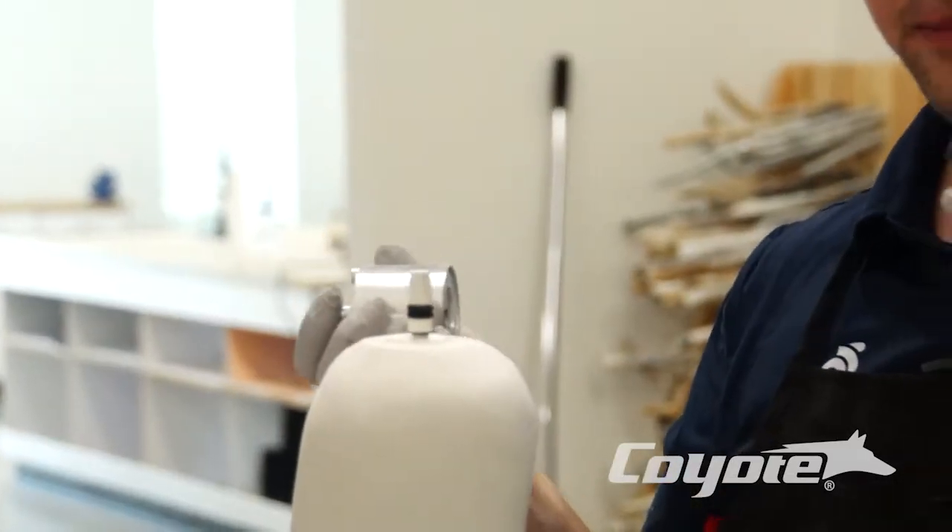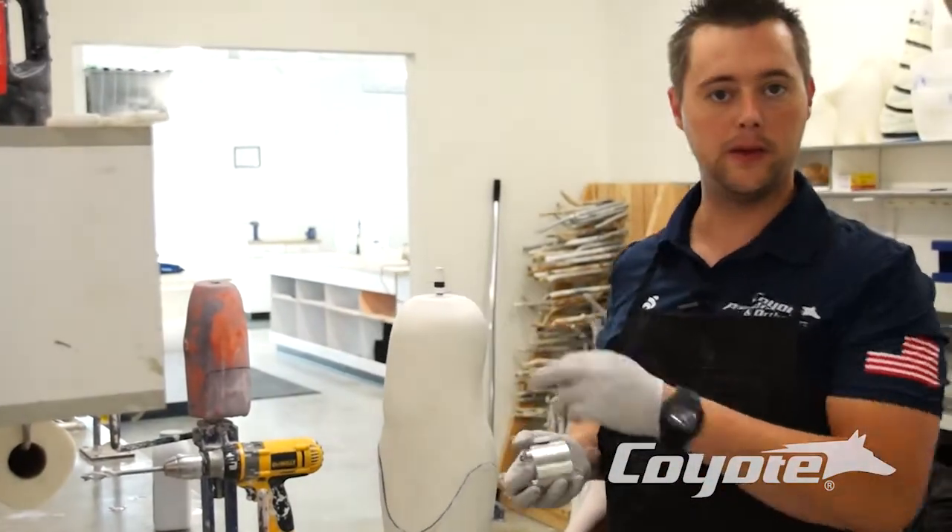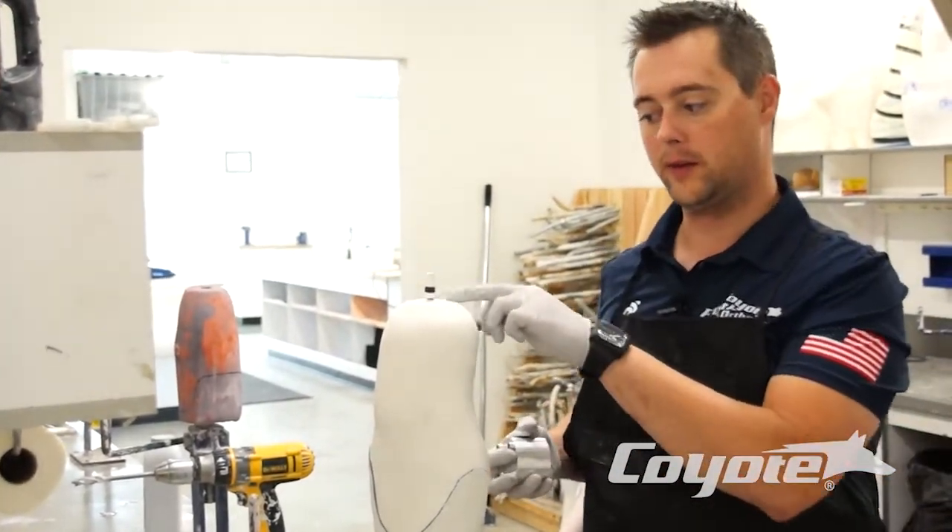Two versions here. We have our bolt, which we're going to bolt into that socket there. We have one with an anchor on it already — we've mounted the anchor.